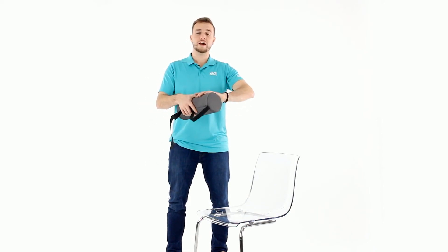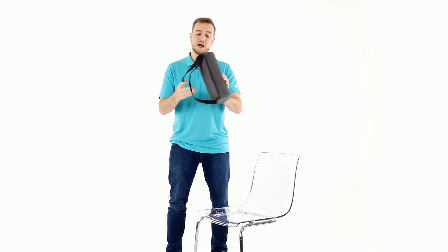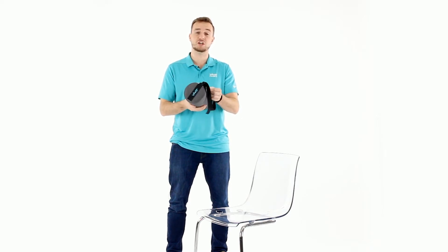Hi, Sam here with Vive Health, and we're going to go over our lumbar roll, which is a hard memory foam. It's got a removable cover that is machine washable.